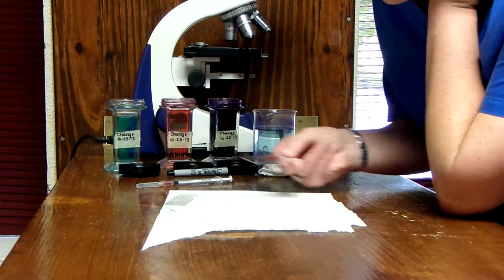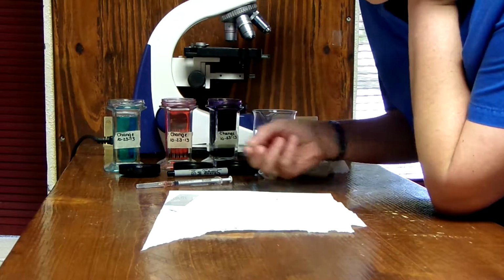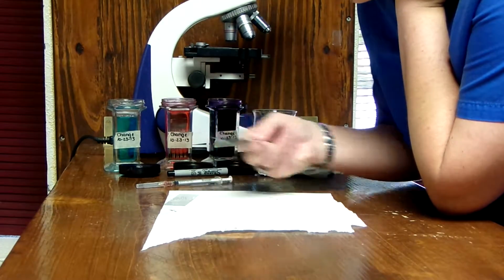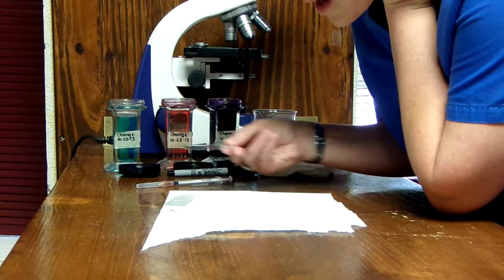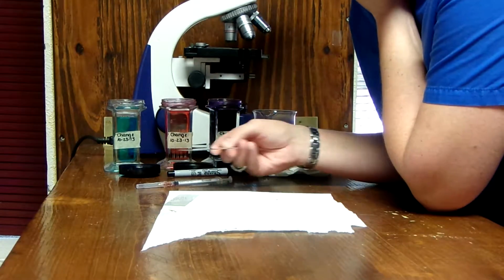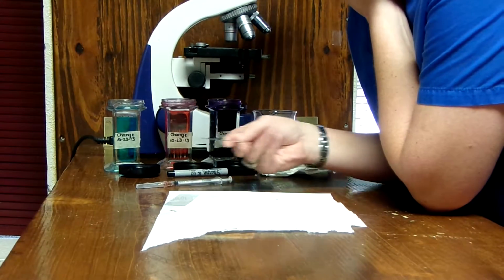Okay, so the parts of a smear or a blood film include your thick layer, of course, where you started with the drop. And then your medium layer is your counting layer, which whenever we do our differential here in just a minute, that's where, of course, they're not necessarily on top of each other, but they're more edge to edge. And then lastly, you have your feathered edge.